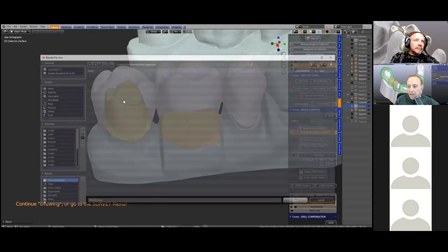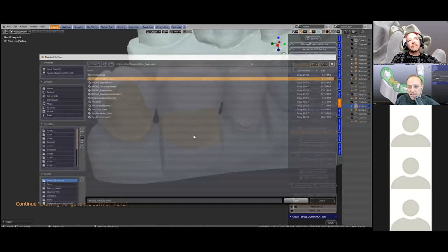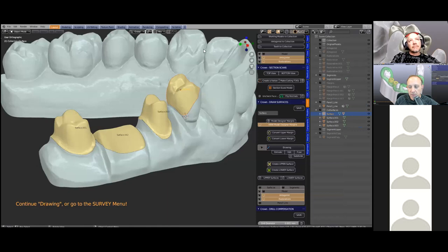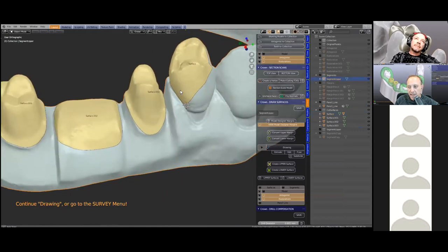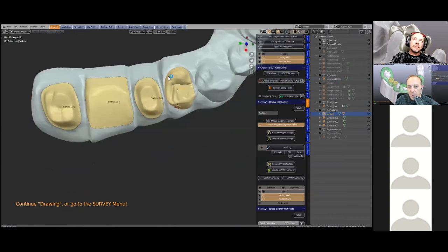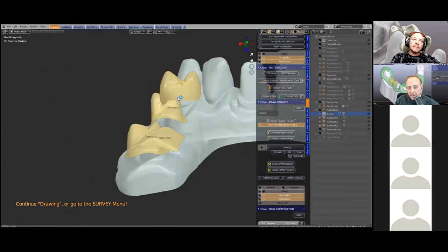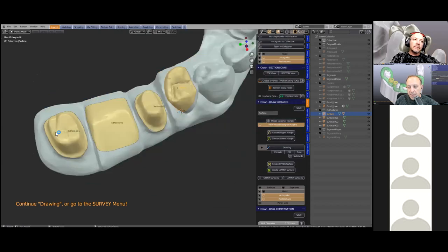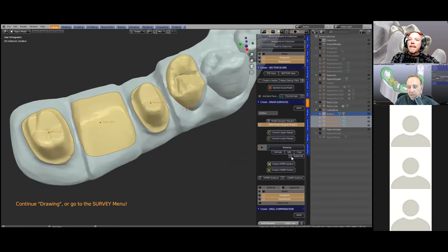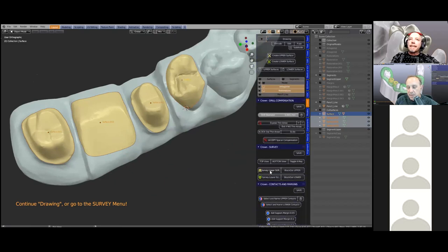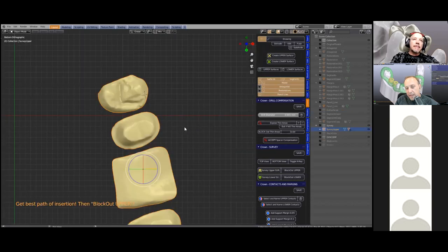It's very helpful to save your work as you go — this is a good habit to fall into, not just with Blender CAD but any other CAD work. He's included the contact area and made a surface for that, because contacts play a large role in making crown and bridge work — we need to block those out as well.